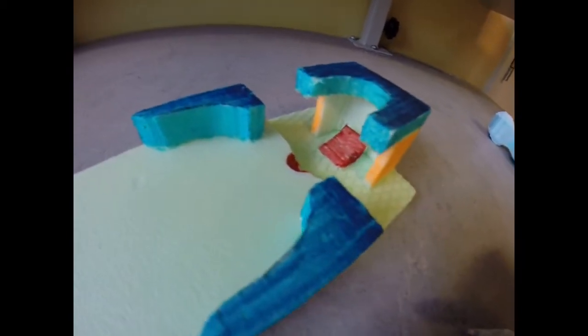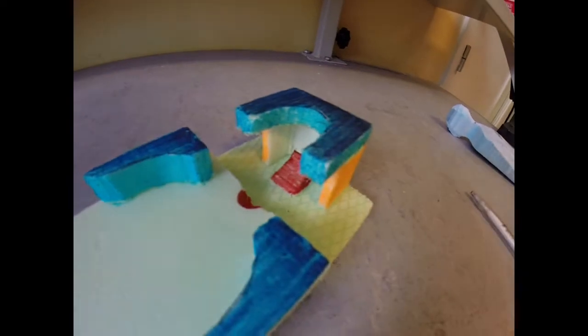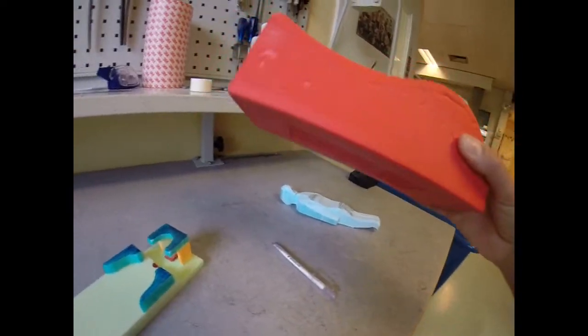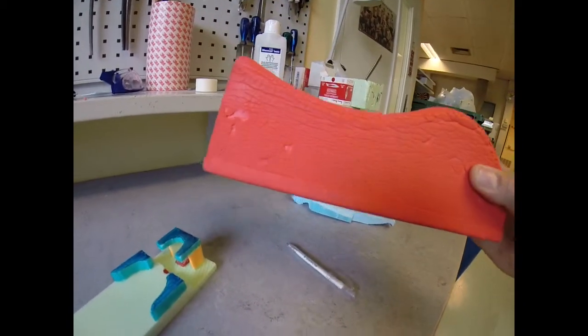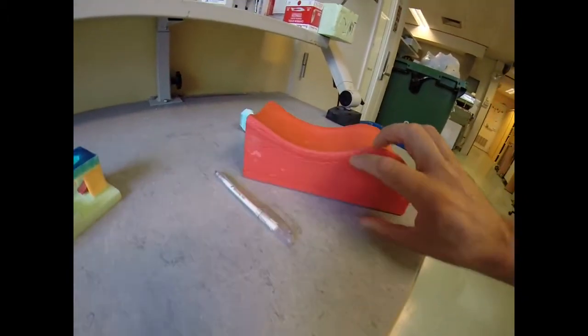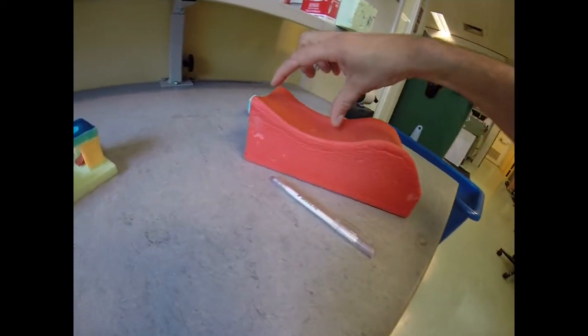I'm just going to share this with you. The red part over here was a red head support and they use something like this from Sinmed Civco Macromedics. They've cut this one in half, so they cut it over here like so, they put this away and they only had this part.